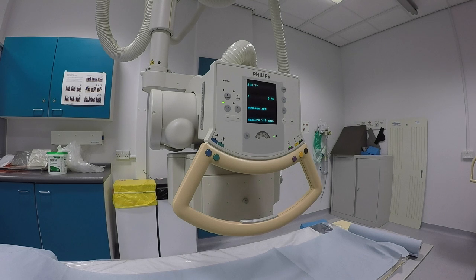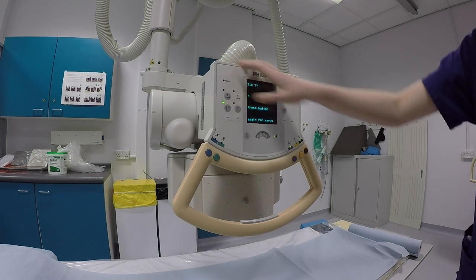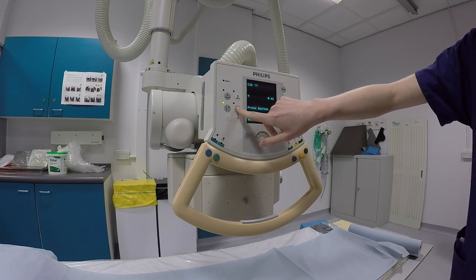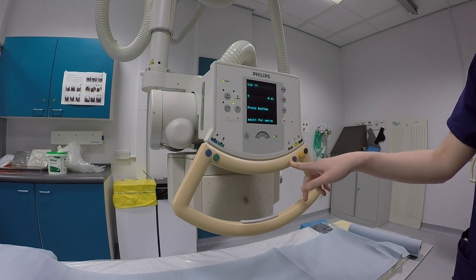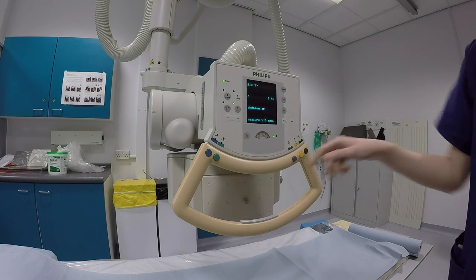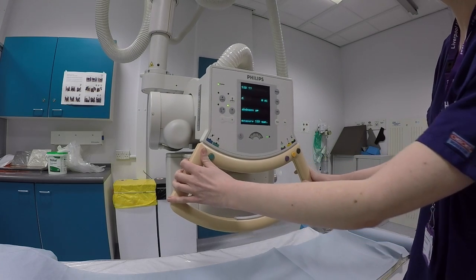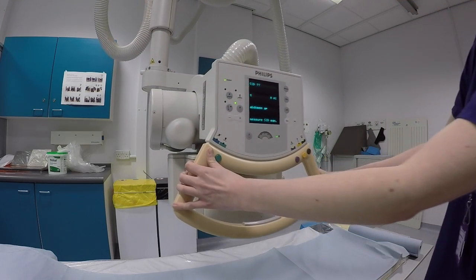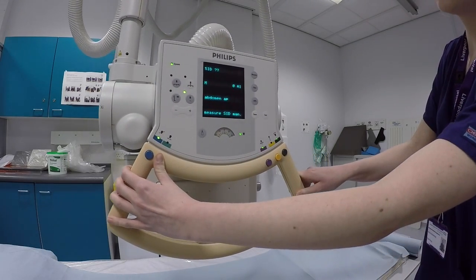So there are a few buttons on the left hand side of the tube which choose what detector you want to use. So this one would be the table. This one will be the wall stand, and then if you're doing a free detector you can press this one as well. And then these lock buttons here are different colours, they coordinate to different things, so you can check on the ceiling the blue and green ones depending on what direction they move. So on the table, the blue one will move it in and out. The green one moves it up and down.